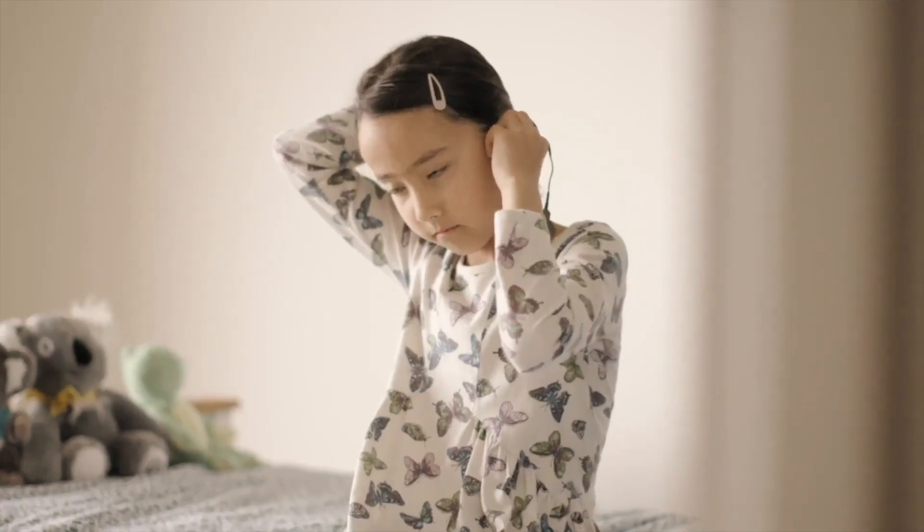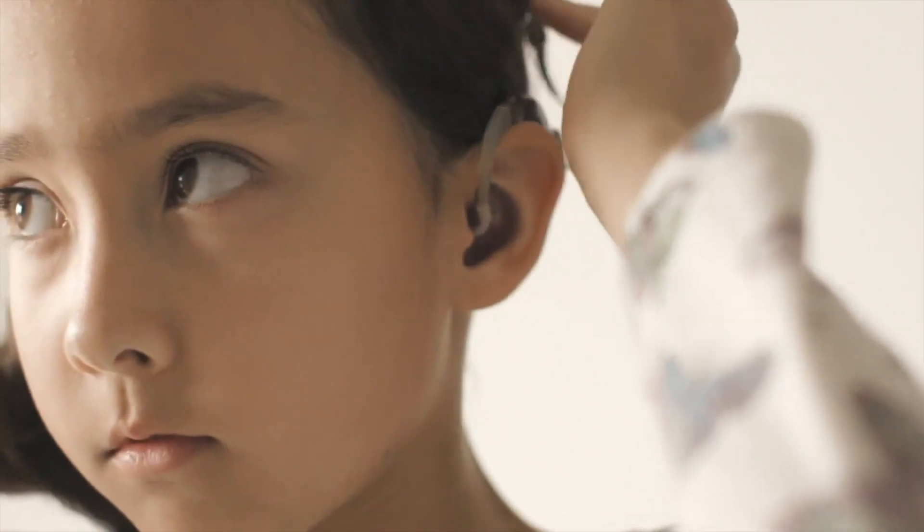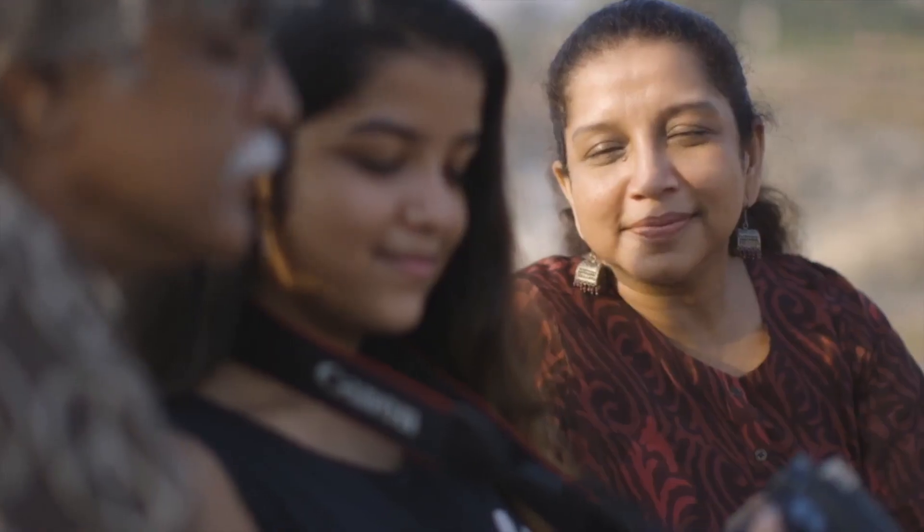A cochlear implant is a medical device that can help people who are born with certain types of hearing loss or who lose their hearing over time.